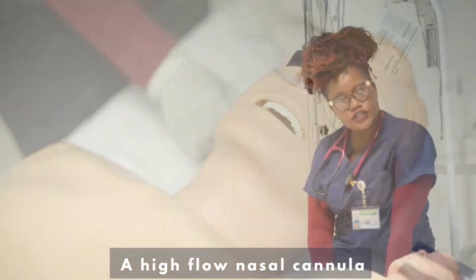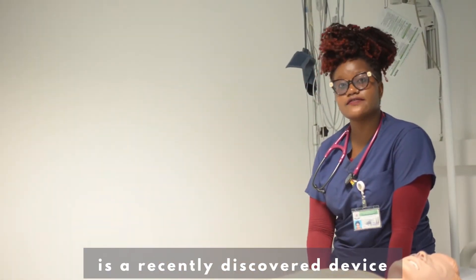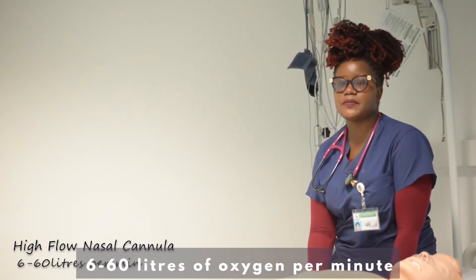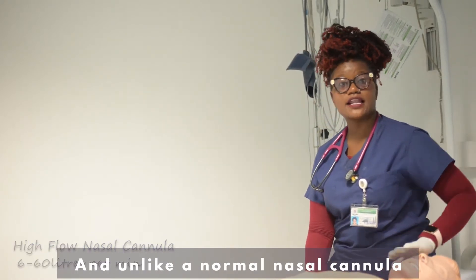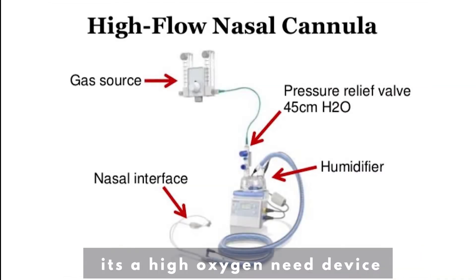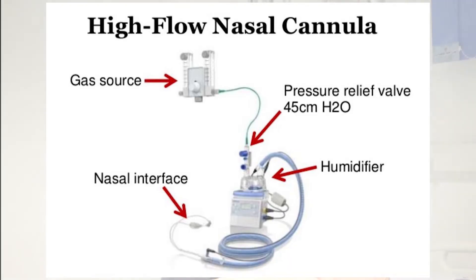A high-flow nasal cannula is a recently discovered device that delivers six to 60 liters of oxygen per minute, and unlike a normal nasal cannula, it is a high oxygen need device.